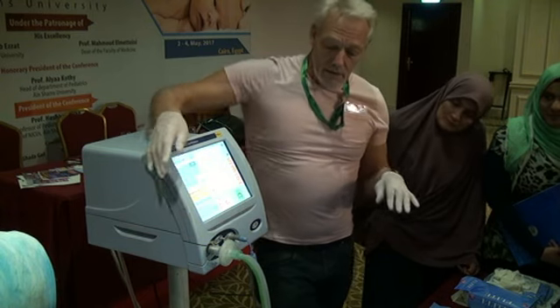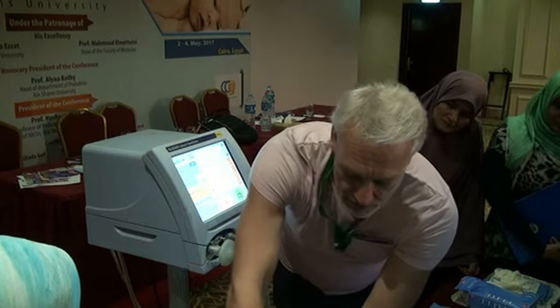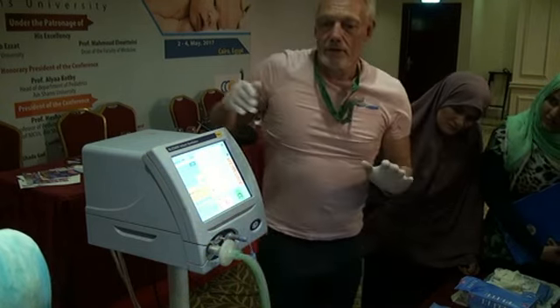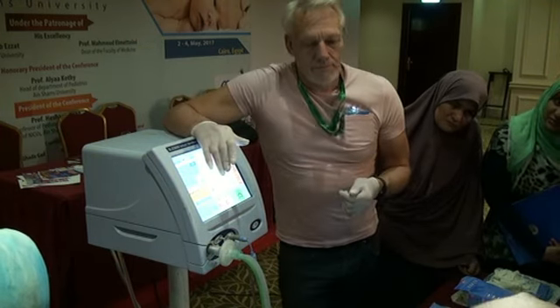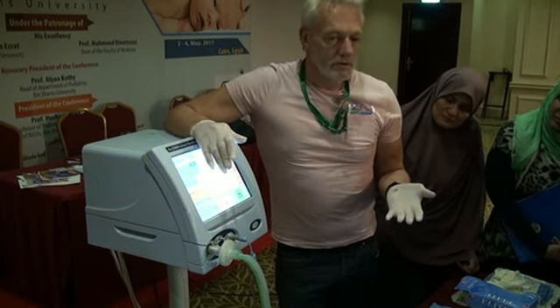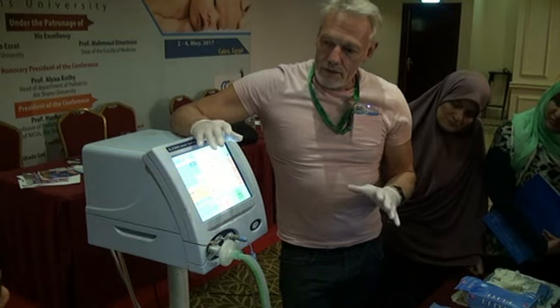Inline suctioning means that my suction is here, and I just feed my tube down and back up again, and that's it. Nothing has changed. Without opening the switch. Correct. So inline suctioning is unfortunately not cheap, but it prevents you breaking a circuit.